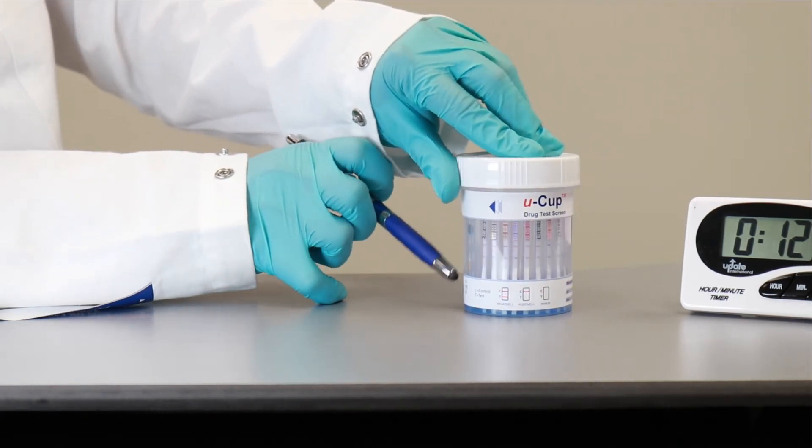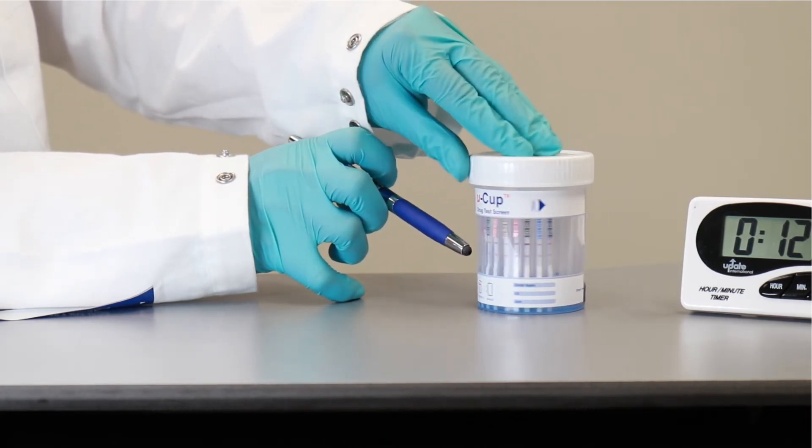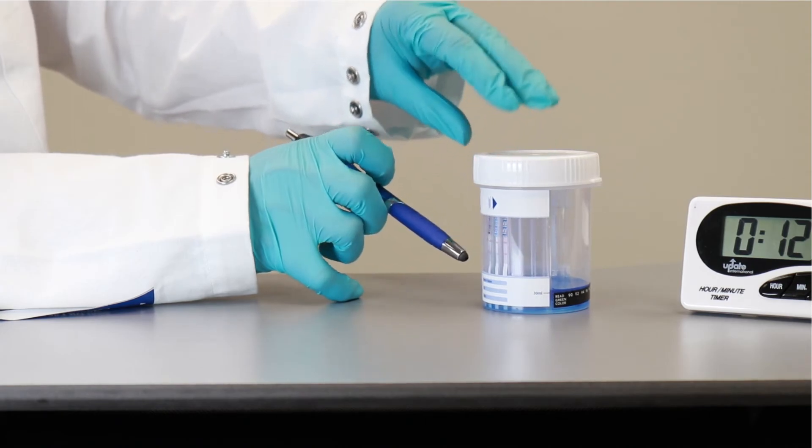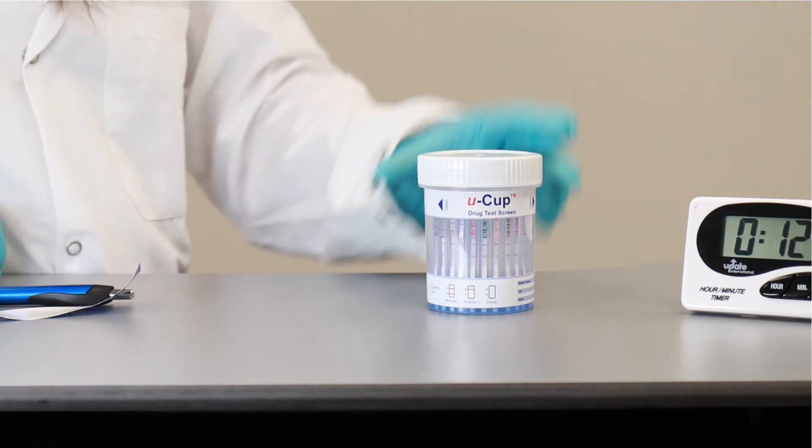So because we used colored water, all of the tests are negative. You can see all the lines, and it's pretty fast and clear dark lines that you can see.